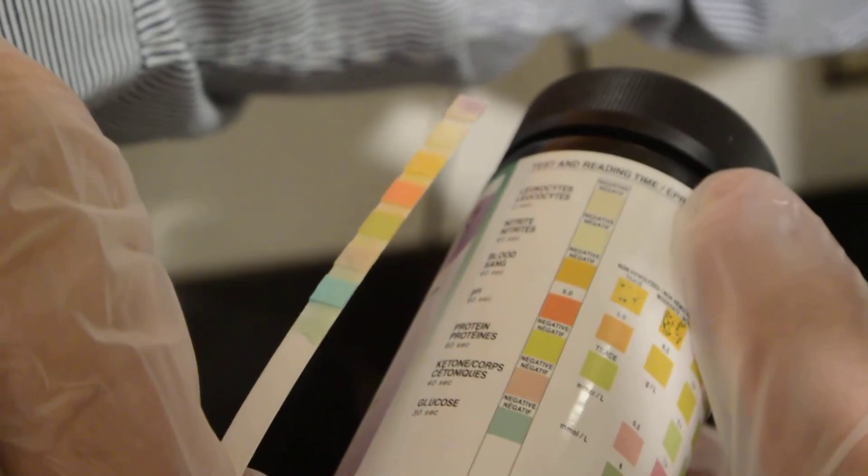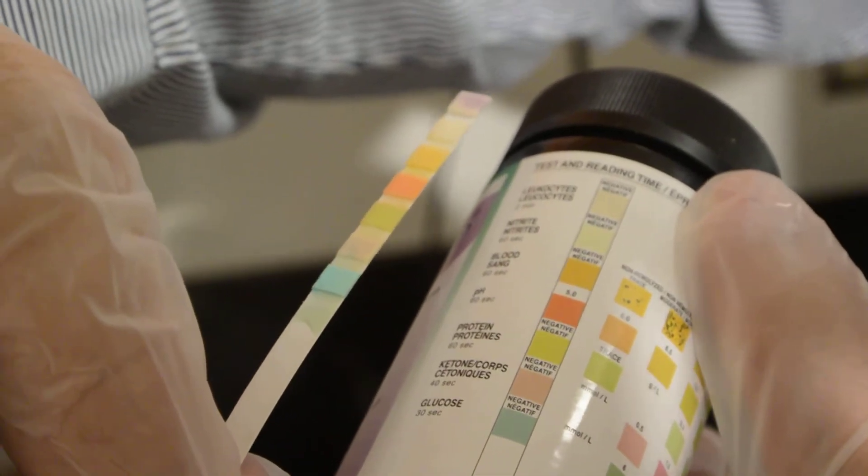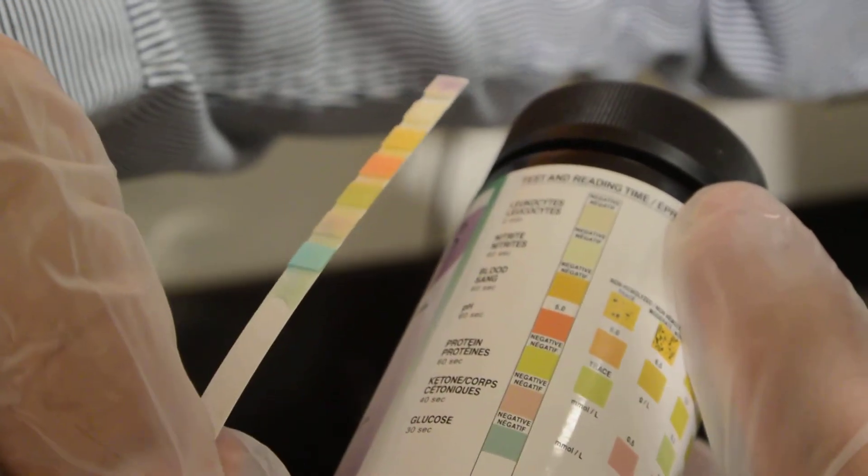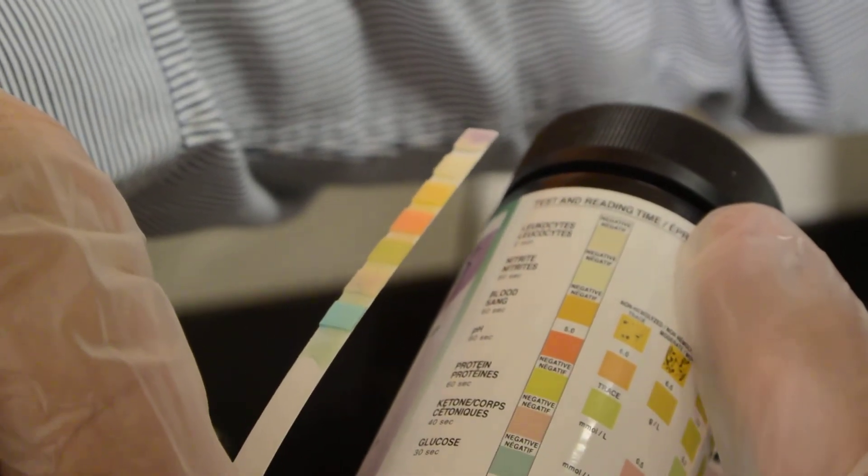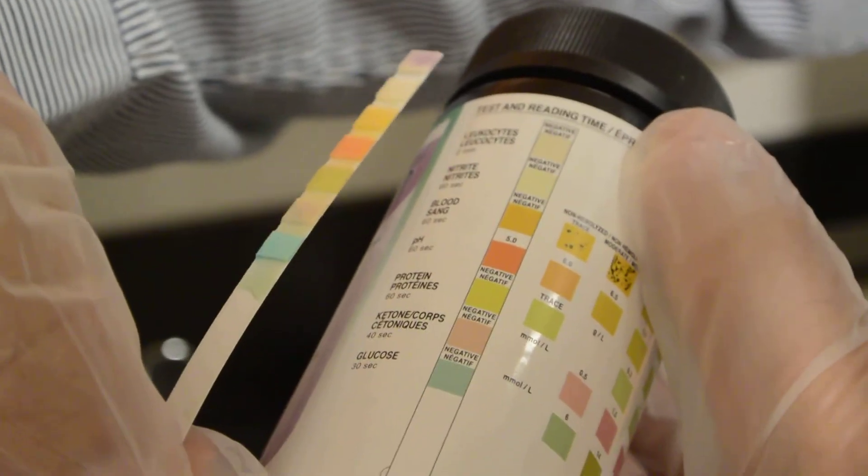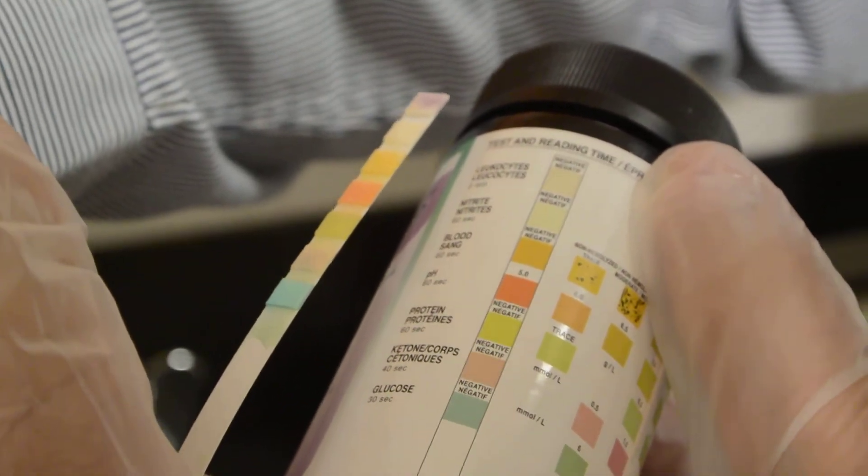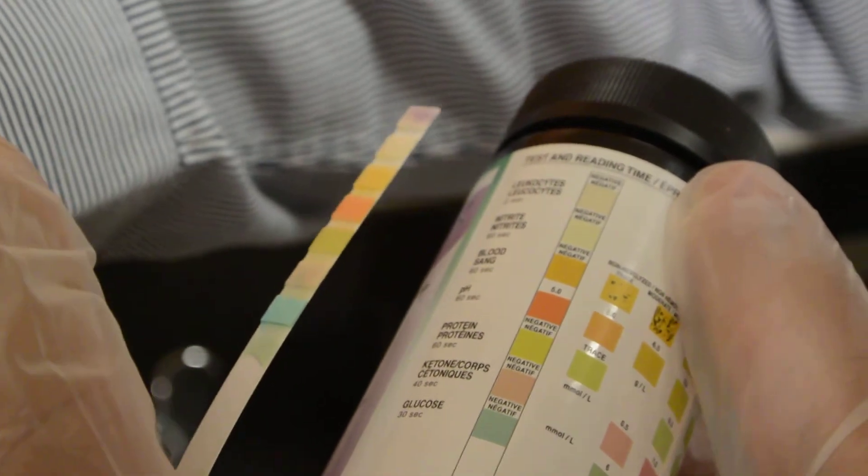Once you get the result, you write down the different parameters and put it into the computer, and that way you can let the doctor know what the result of the test was.